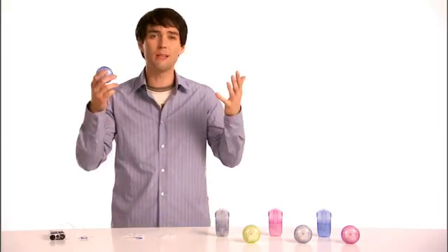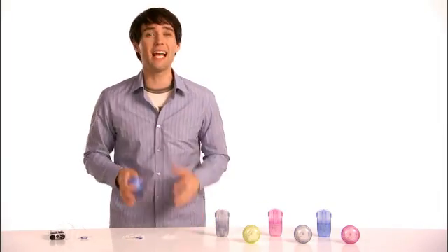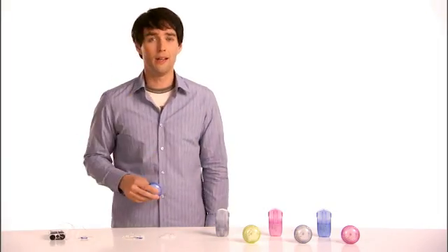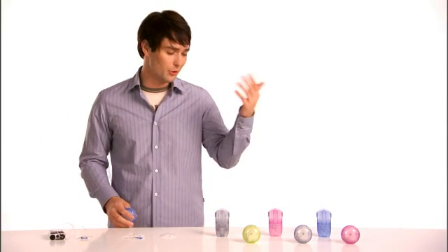Now here's a neat thing that not every infusion set can claim. These two sets are all-in-one, which means the inserter and infusion set are combined in this nifty portable unit. So you can toss them in a bag, take them on the road with you, since everything's sterile and self-contained. And if I'm feeling flirty, I have a lot of colors to choose from.